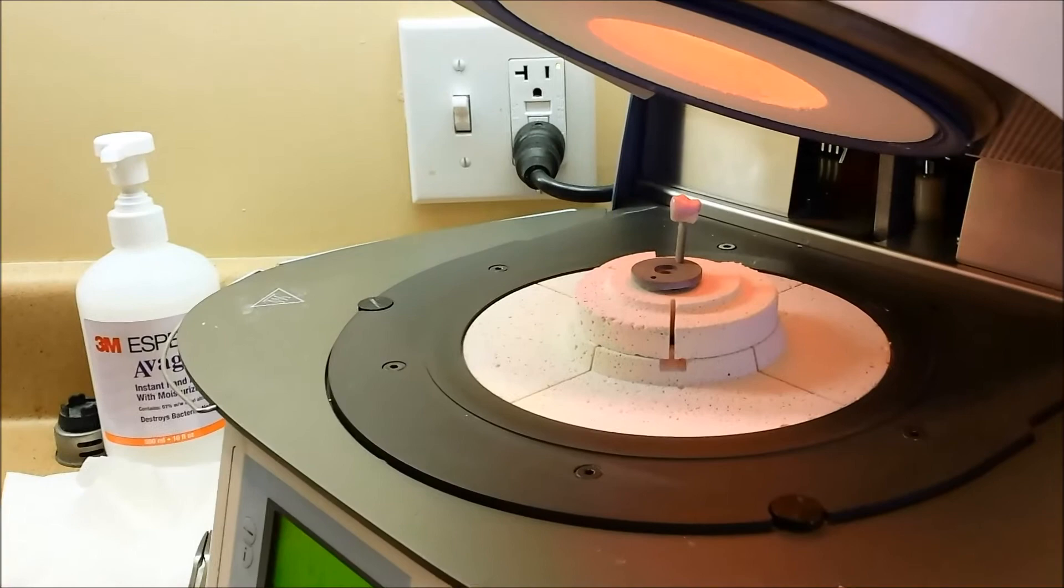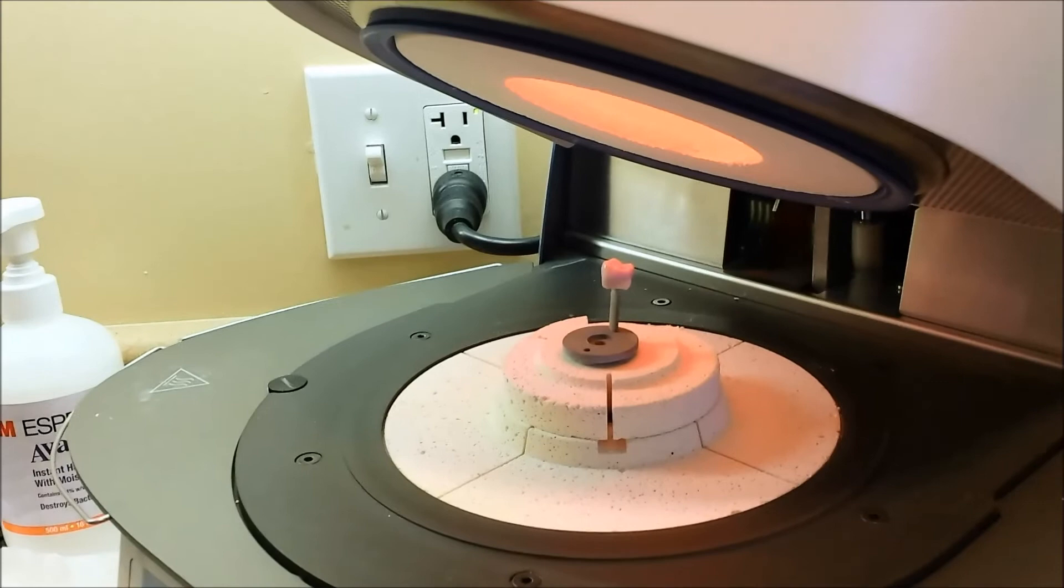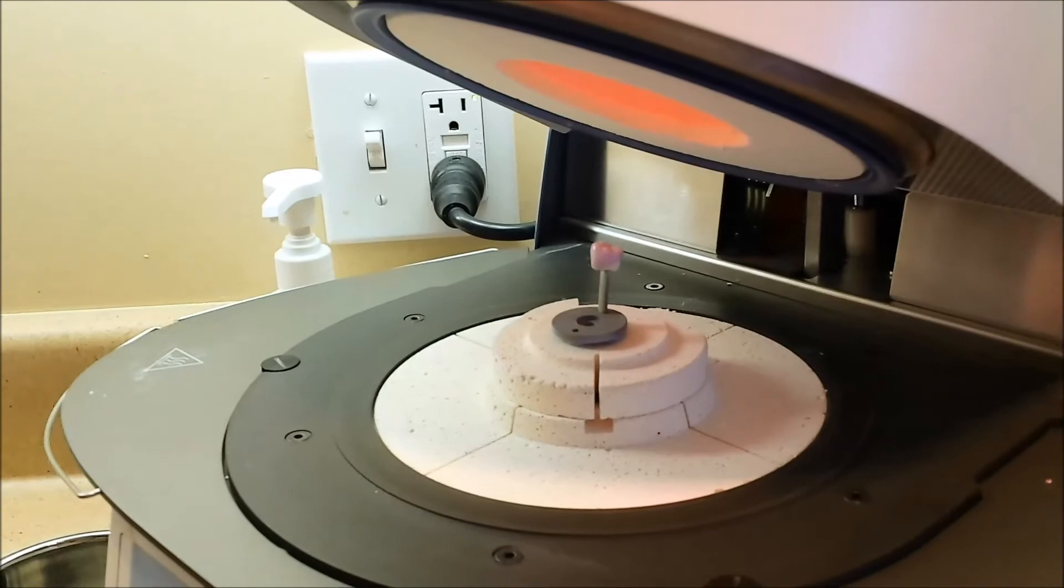And it's hot. It's very, very hot. Clearly it's well insulated because there's a lot of burnables around it. So when does the lid go down? It probably takes about three or four minutes actually. So it's a slow process.